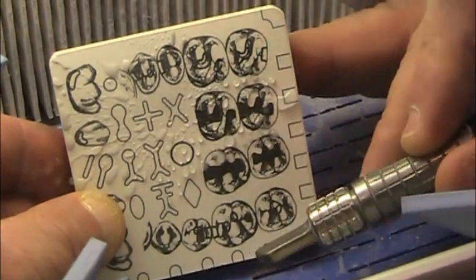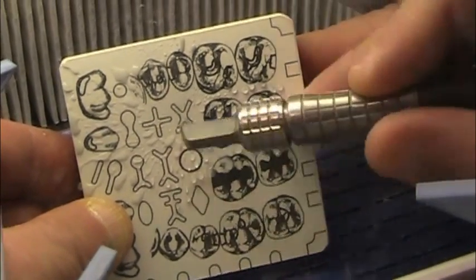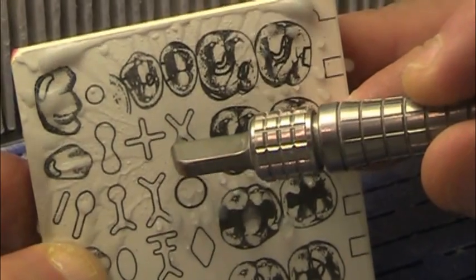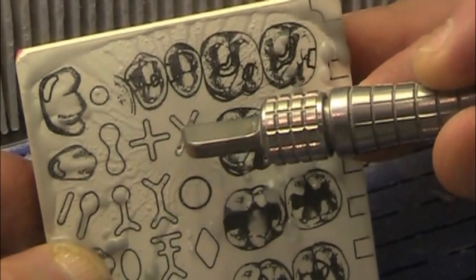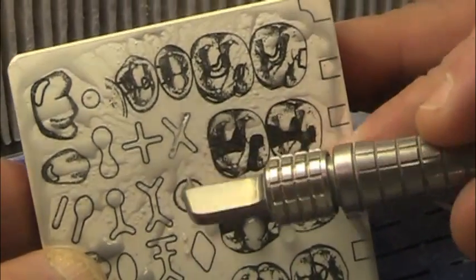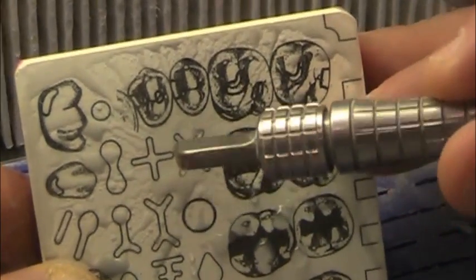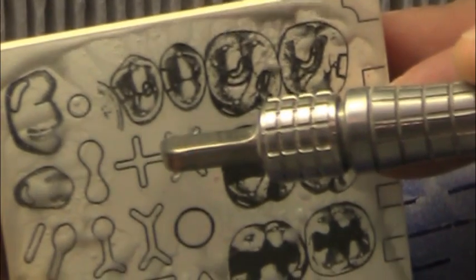You'll see, I just activated it. You can see the hole that's already started deep into what would be the restoration preparation. I'm just going to quickly make a little slice across the tooth, and you can see I'm staying within the parameters of the internal aspect of that cross line.